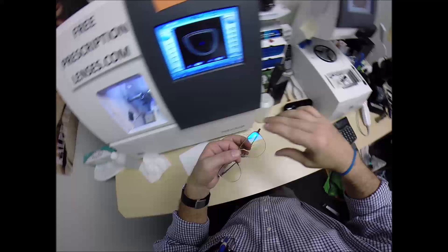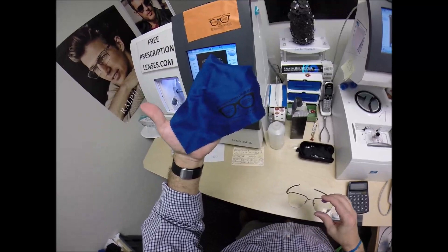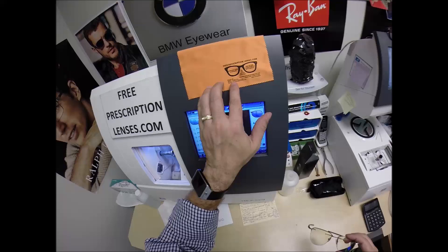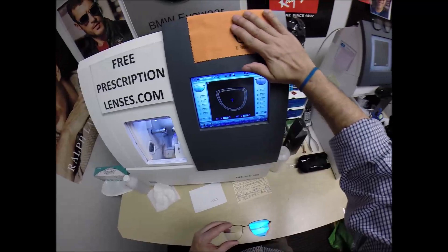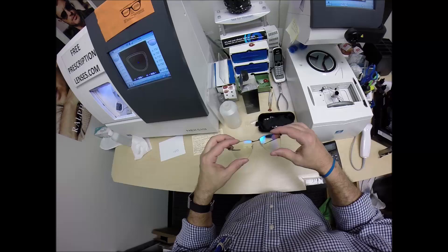So if you get these in the mail and you see a wrinkle mark, you know this works. You can't tell me you can't clean your lenses with it. Besides, who has time to reach into my pocket and pull out mine? You don't want me to use mine. By the way, I don't ship the blue because the print is so dark. They screwed me on this. You can't read that. It's a bad omen when you get a pair of glasses and you can't read what's on there. And you can barely read what's on here because they made the print too small. I've reordered some. I bought a thousand of these. I'm eating the cost of those. And I ordered some more. Hey, it's all, everything in life is a learning process. That's fine.